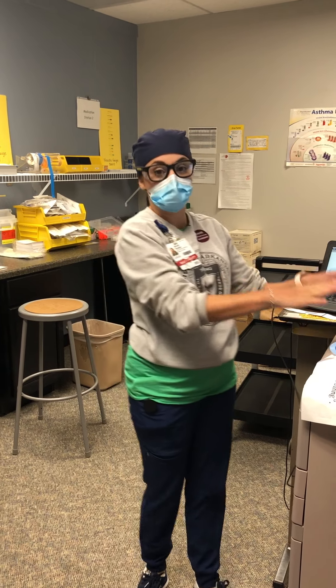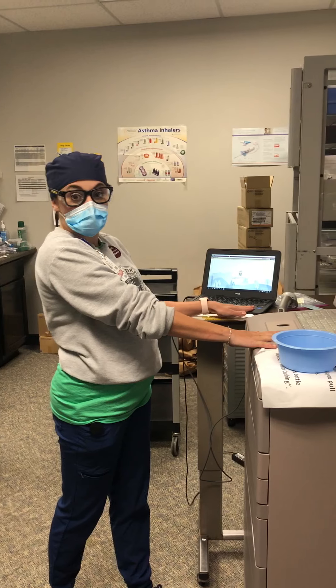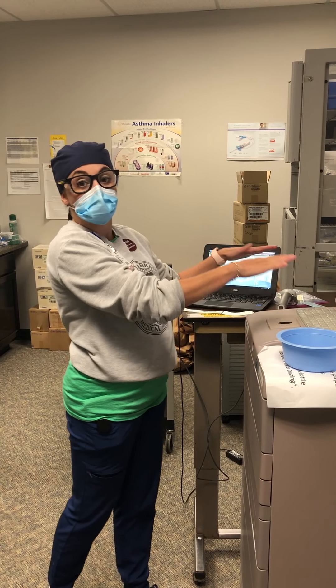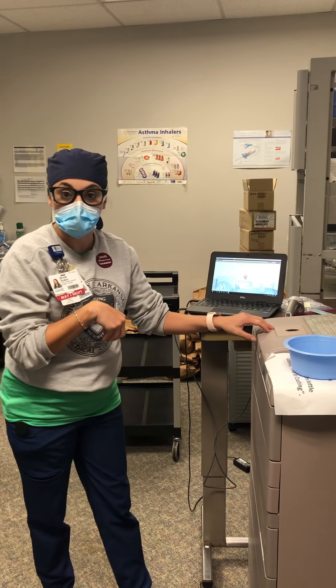We're going to learn how to get into the actual Pyxis, how to find our patients more on the computer, and how to compare the two and look up meds and pull out the med we need.